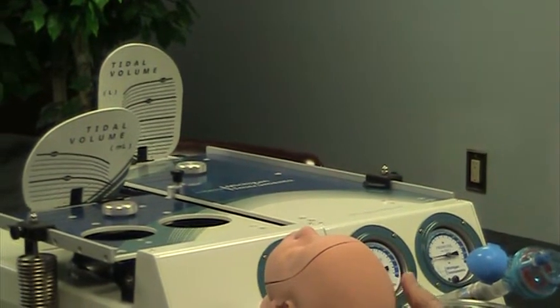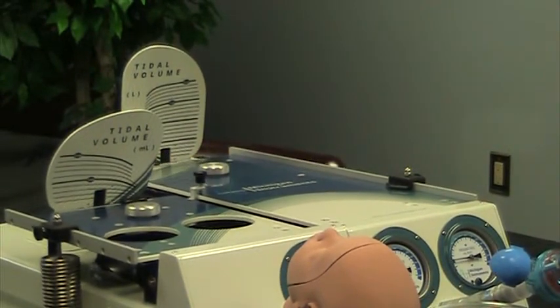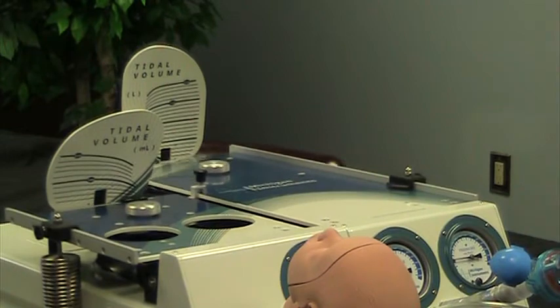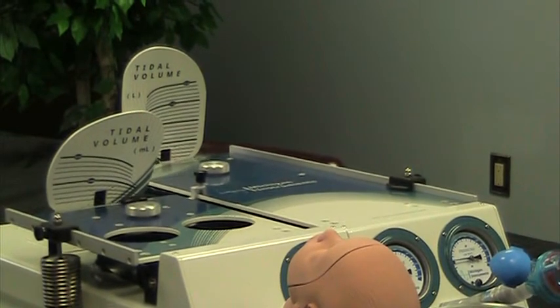I've also hooked up an infant head simulation module because that can be part of your simulation to enhance the spontaneous breathing setup.